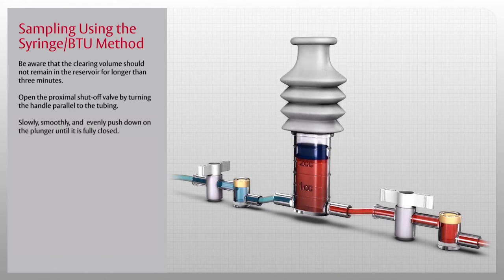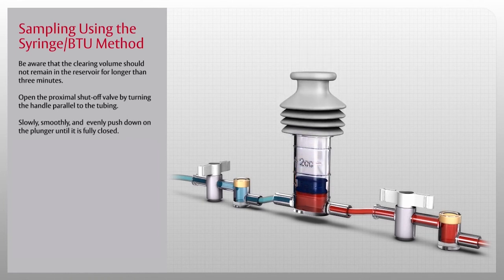Now slowly, smoothly, and evenly push down on the plunger until it is fully closed.